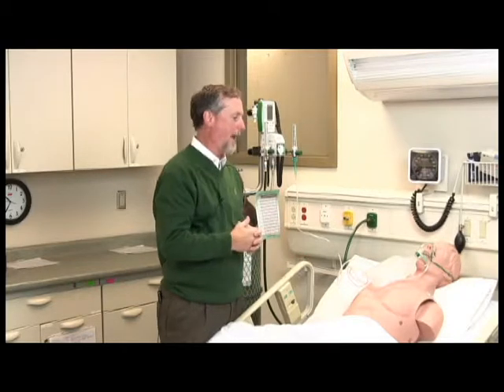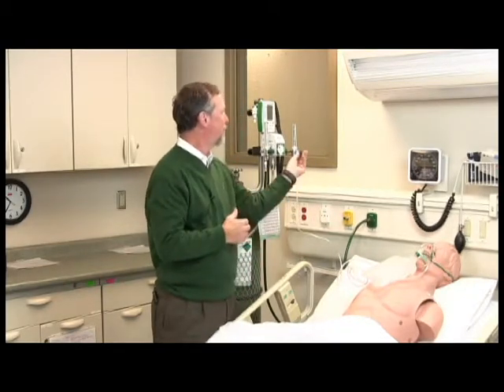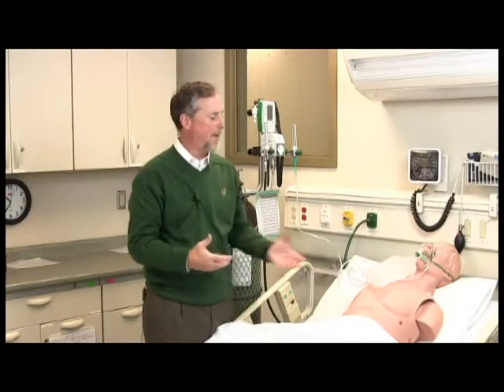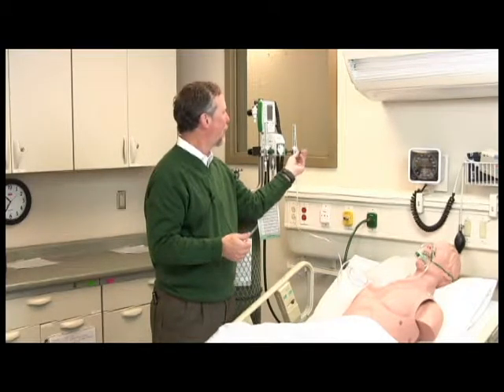And maybe you can hear that, but as I turn the FiO2 down to 40%, you can hear the flow change. So we have our flow set at 10 liters per minute on the flow meter, which is a total flow of 15 liters per minute to this non-rebreather. Of course, if the patient's minute volume or inspiratory demand is high enough, we want to use enough flow to keep this bag inflated.